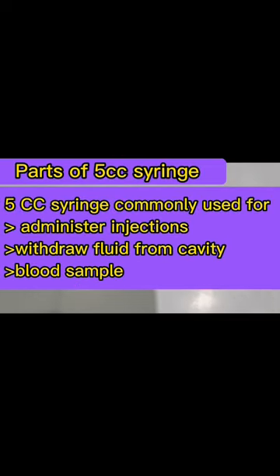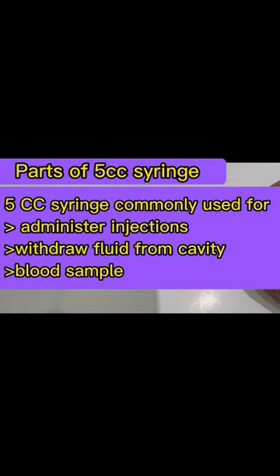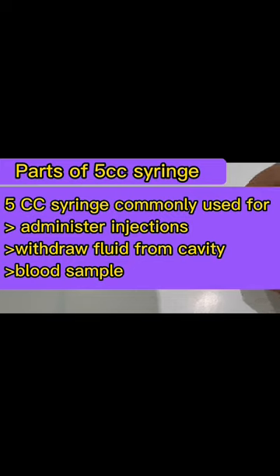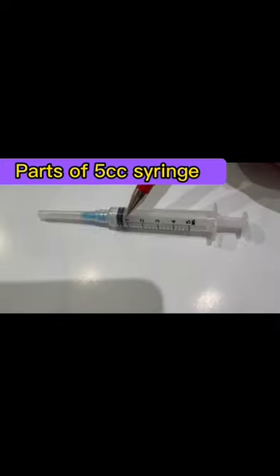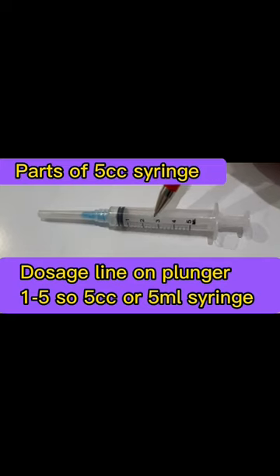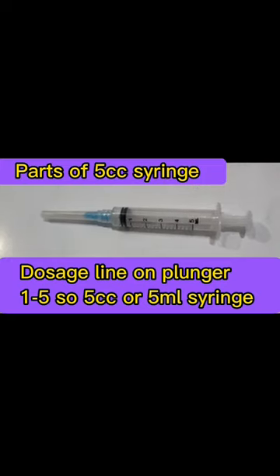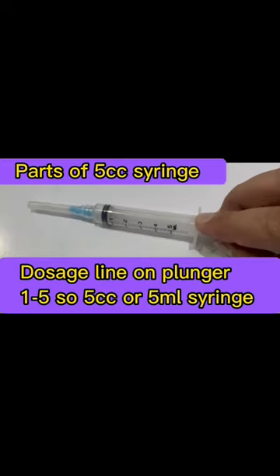Welcome to Medical Ocean. This is a 5cc syringe. It has three common uses: to administer injections, withdraw fluid from cavities, and collect blood samples. It is called a 5cc syringe because 5ml and 5cc are the same.